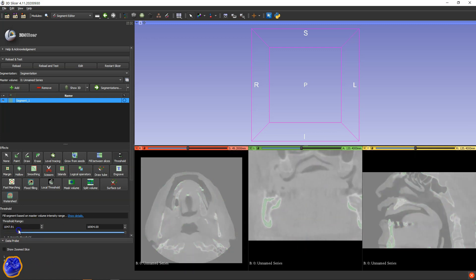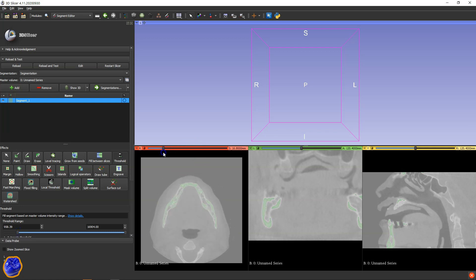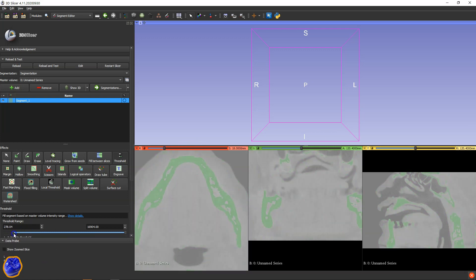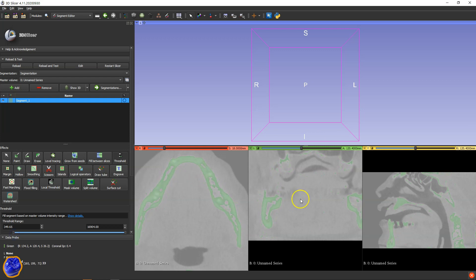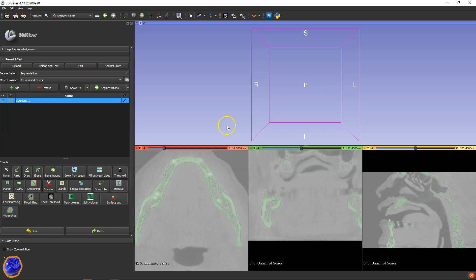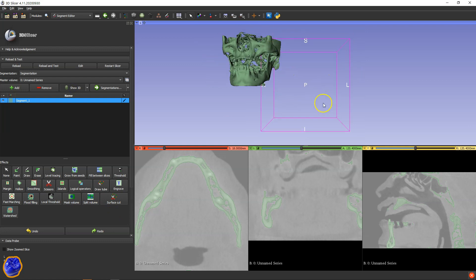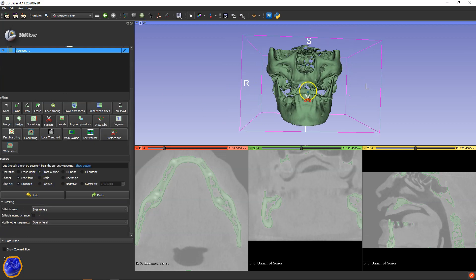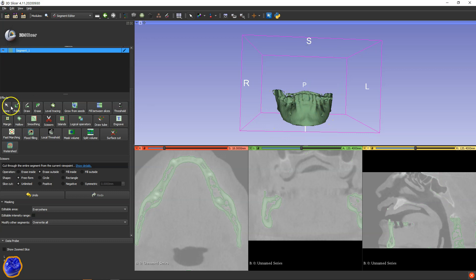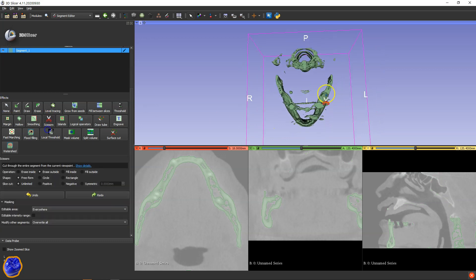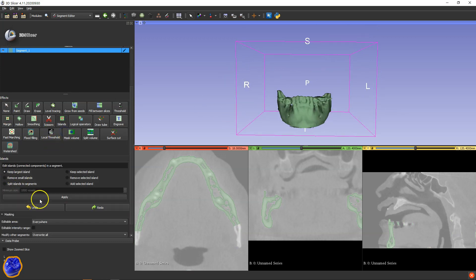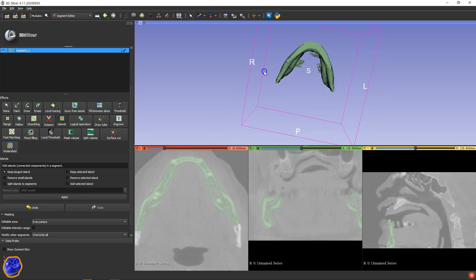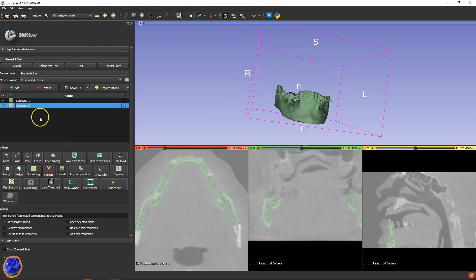Here we are segmenting the bone. Make sure that you don't have too much noise. We're looking at a crisp outline of the actual bone. And then we're going to apply that and then view it. Click on that little icon on the left to bring that into your cube. Then with the scissors select delete outside and clean up this segment. When that's done, click the island and keep the largest island. Then let's add another segment. We can rename these.